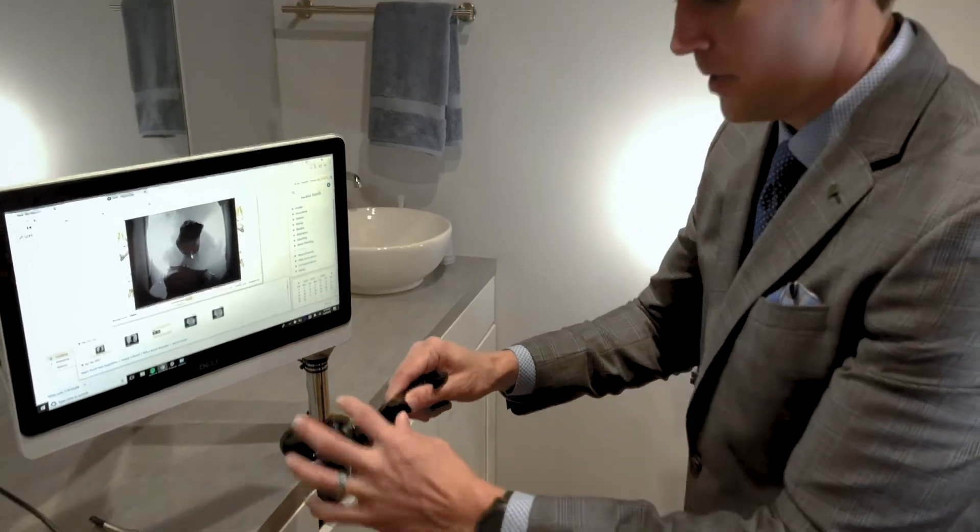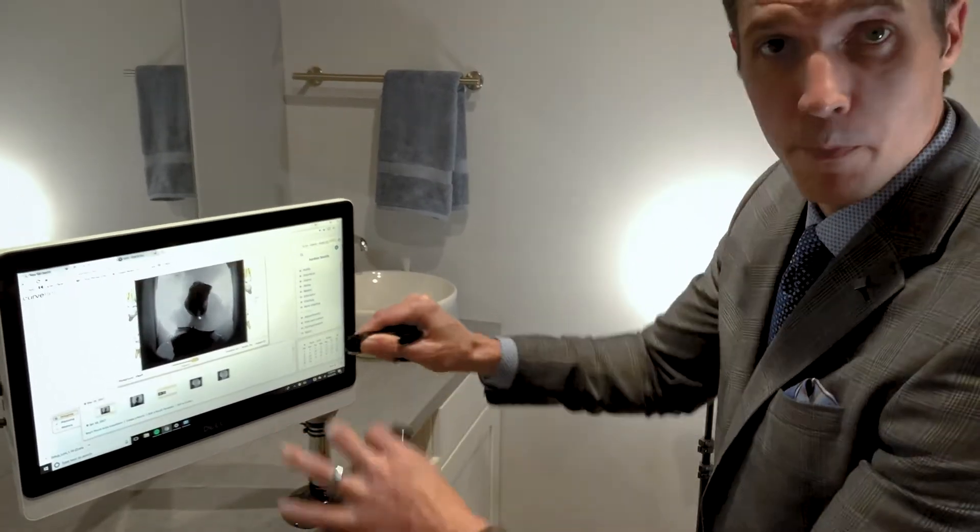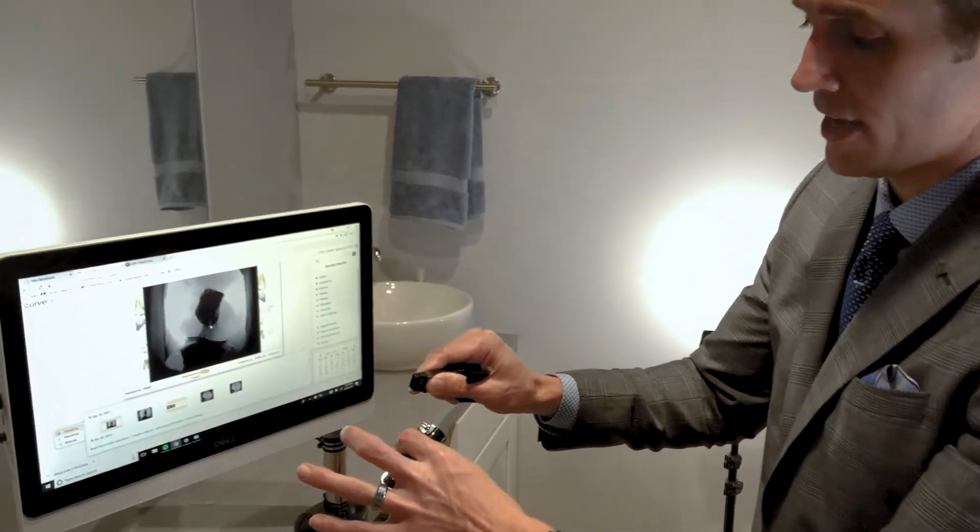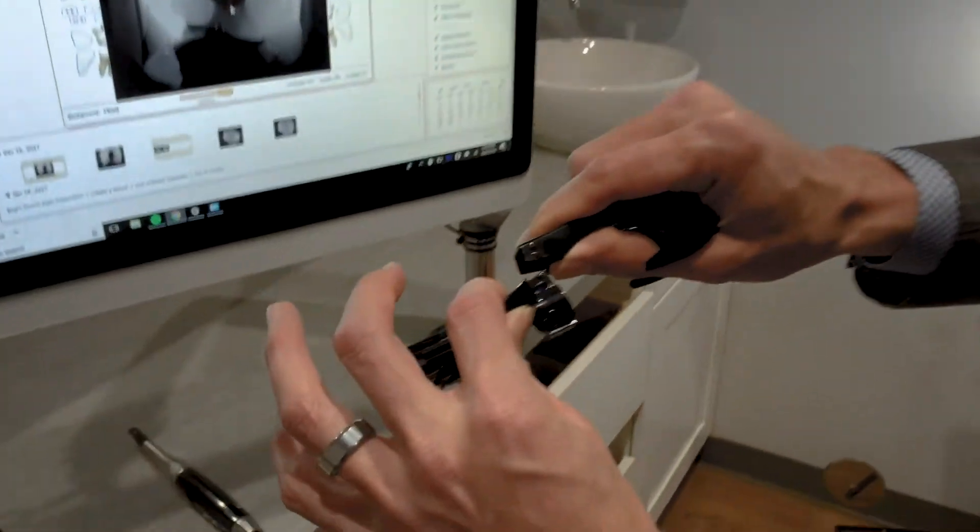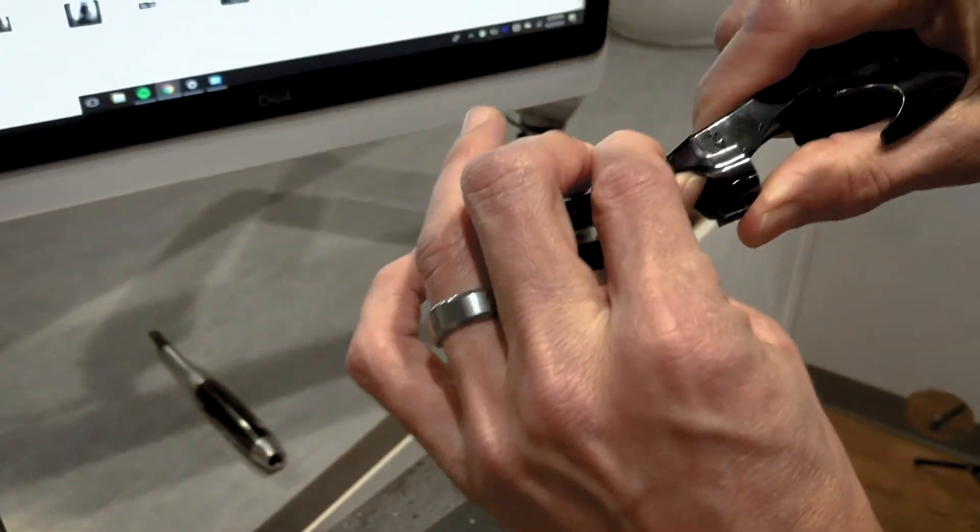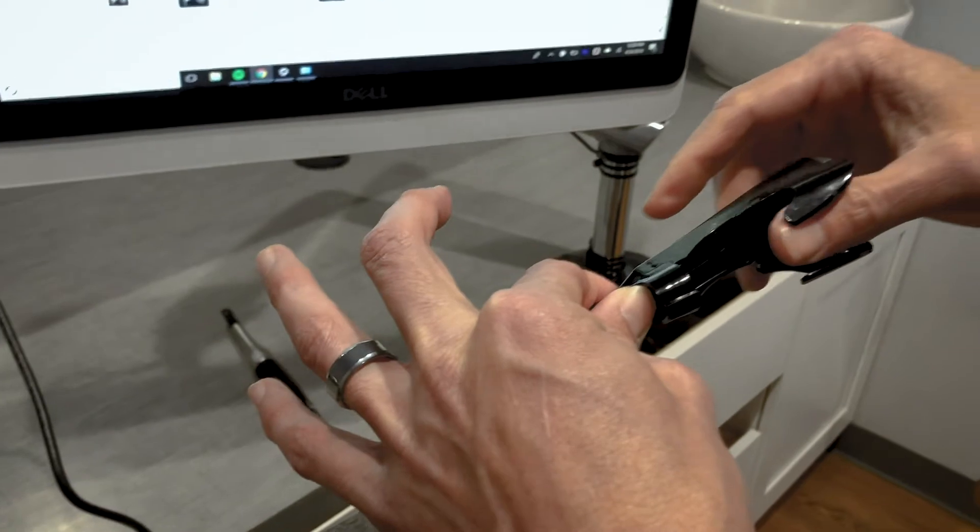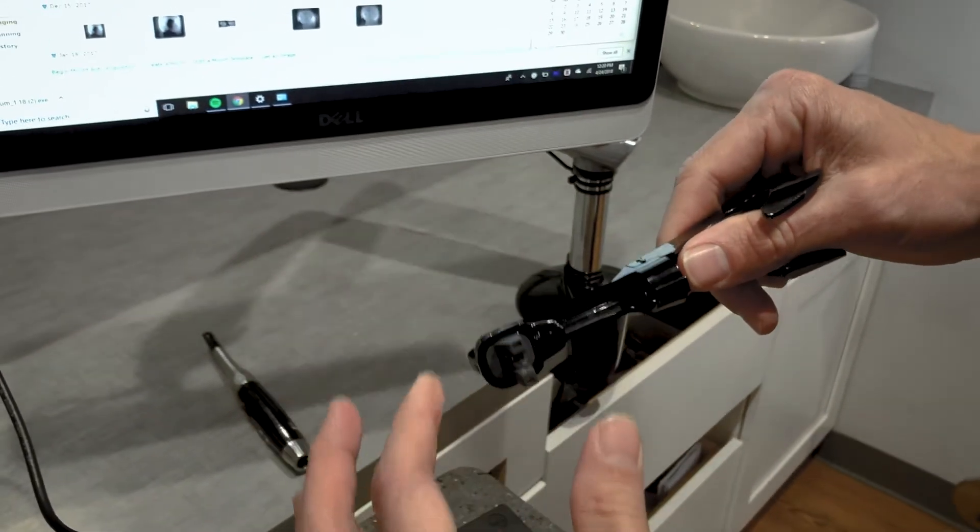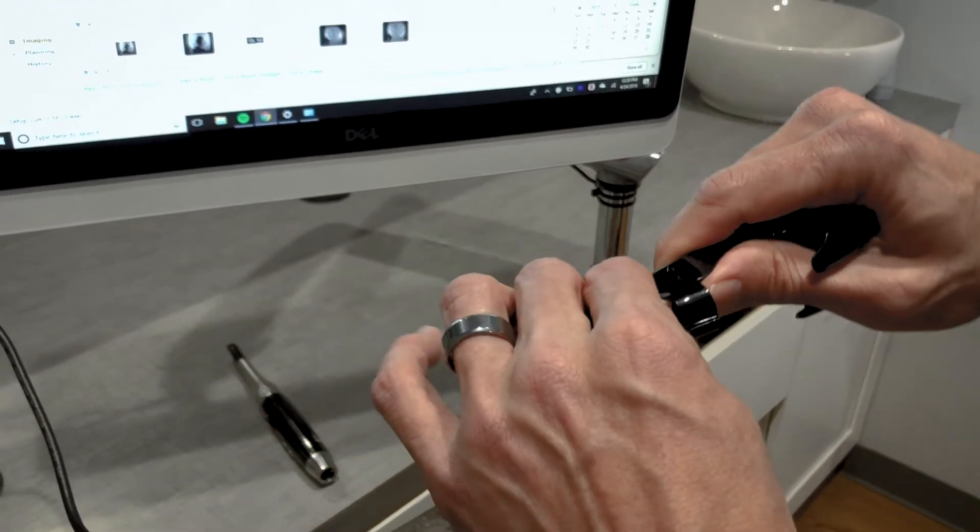To detach the tip, just take it and detach just like that. So you'll see there are arrows here, just attaches and detaches just like that. Take your thumb, put it on the inside, pinch here, and you're going to detach.